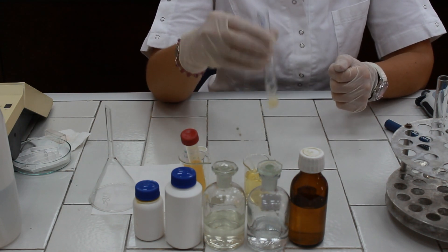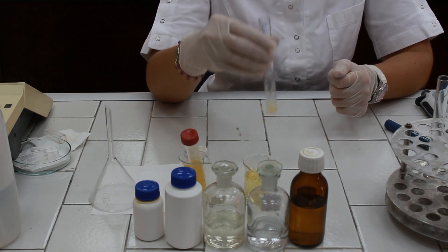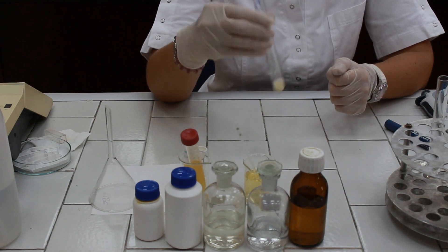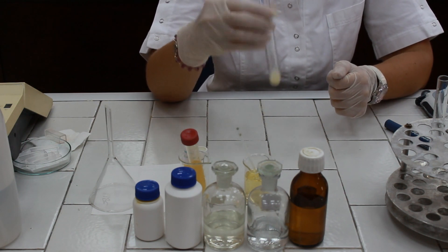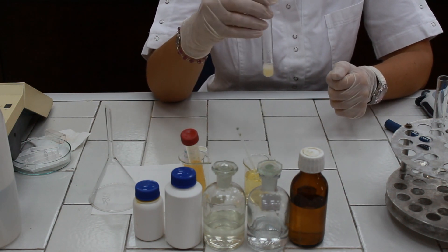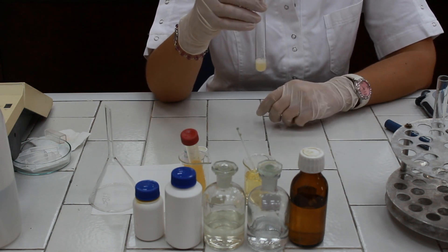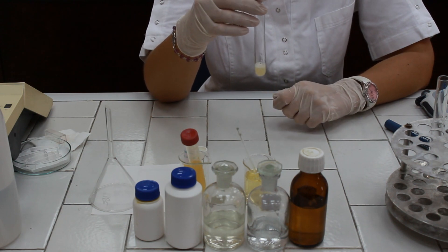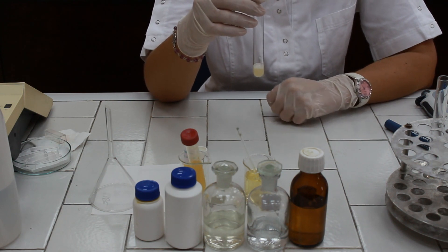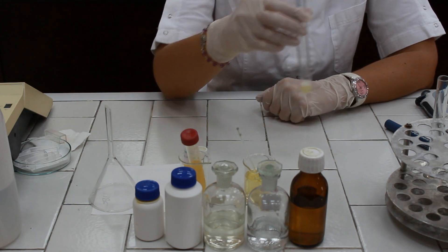Mix the test tube. In the presence of indirect bilirubin, the color in the test tube should be pale pink, but it needs some time to develop.